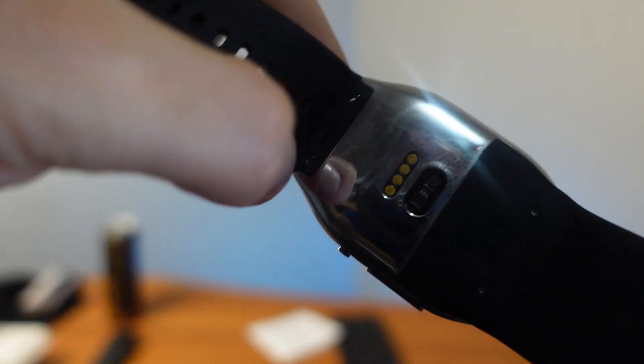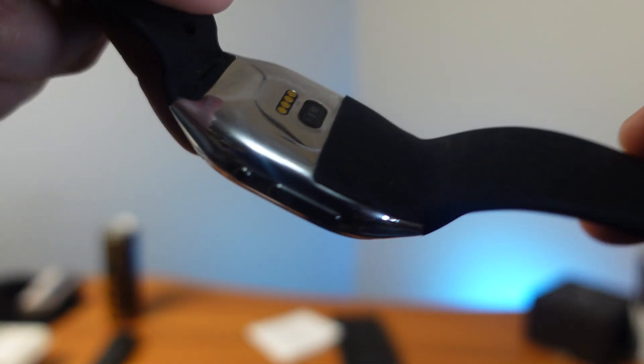When you clip on the charger it's a micro USB that sits in a nice little spot. The bands are not replaceable — you'd probably need to contact the manufacturer to get them replaced. It's a very solid, pretty heavy build. For overall thoughts: if you need something on the go with a blood pressure monitor, I really don't see any other options on the market currently. It takes about 20 seconds to get a full reading and it's fairly accurate as long as you keep a consistent environment.